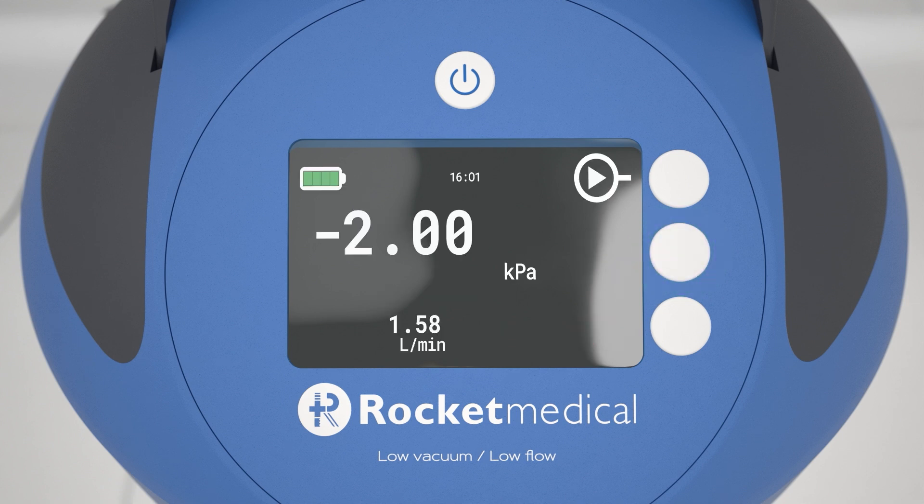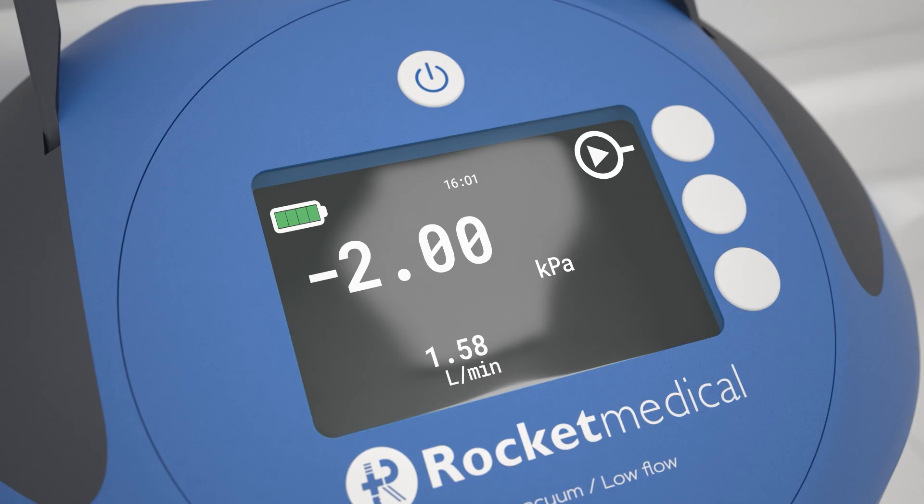When the PSU is running, the screen displays the suction level and flow rate. The flow rate is the volume of air being removed by the pump in liters per minute. This is measured to two decimal places. There are four different information screens available to monitor your patient's air leak. This data is provided in real time. All patient data is recorded and stored for download if required.